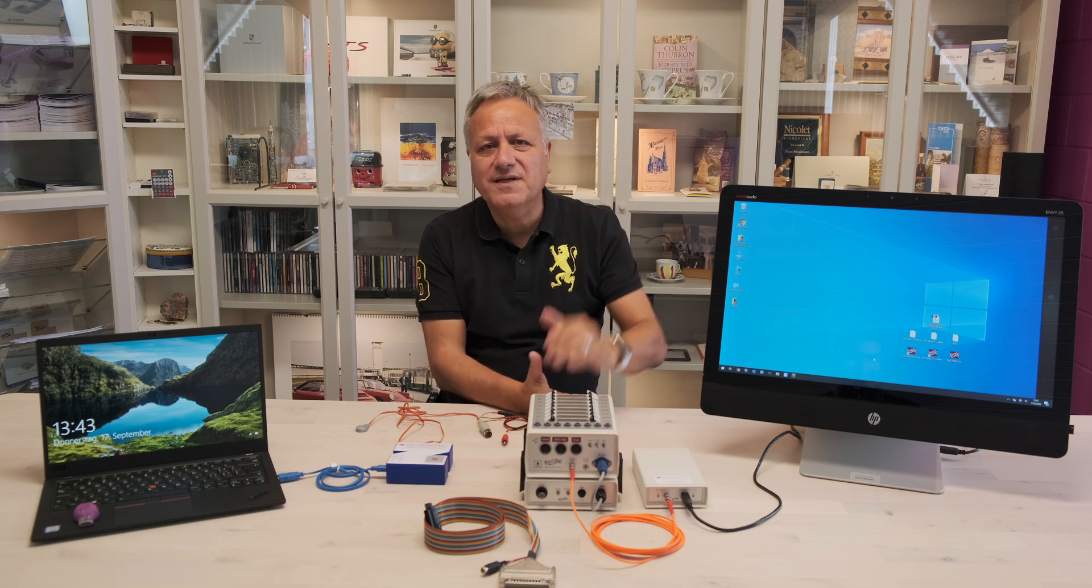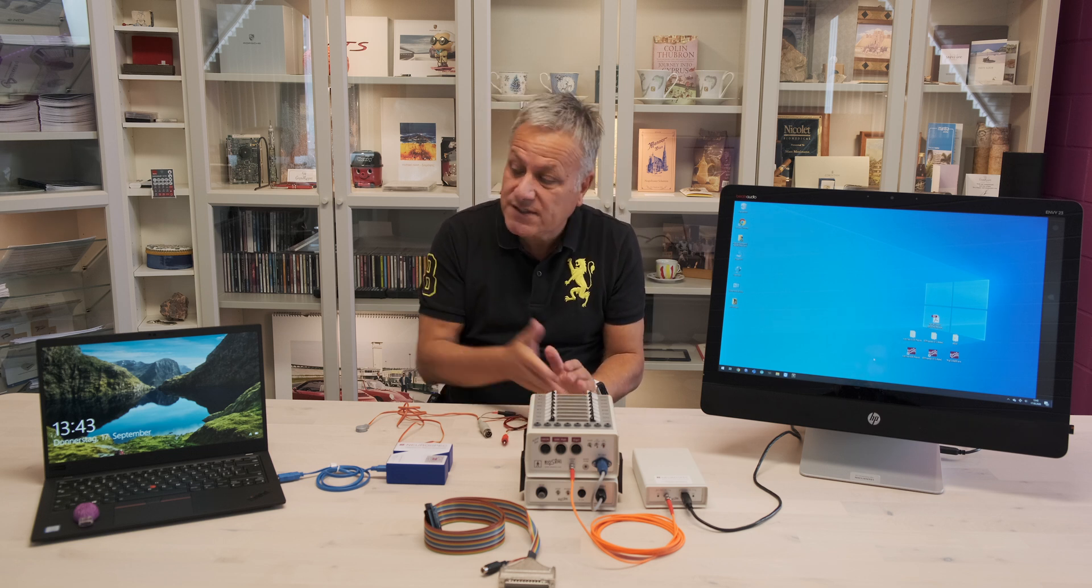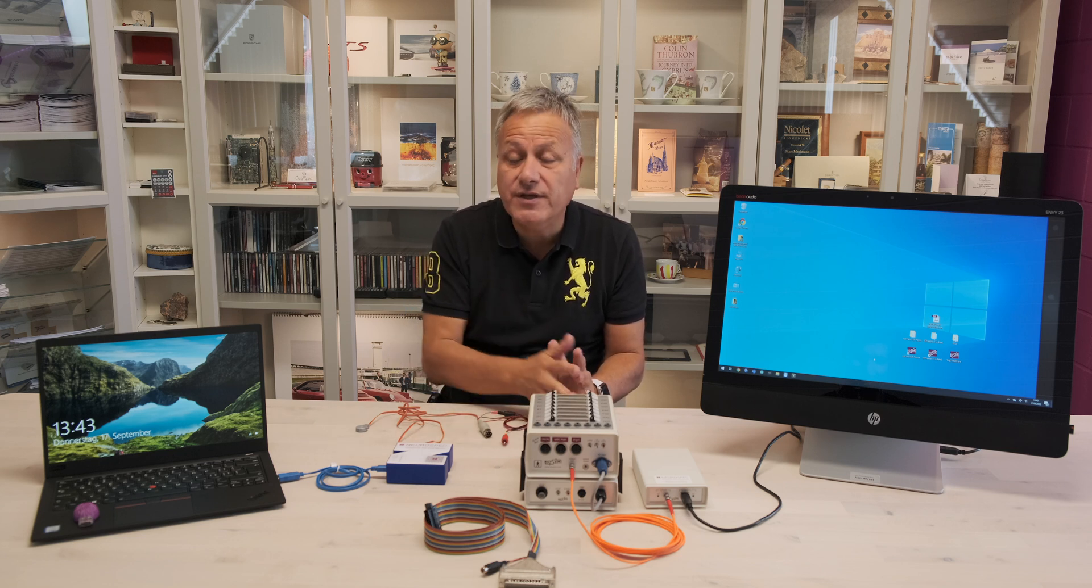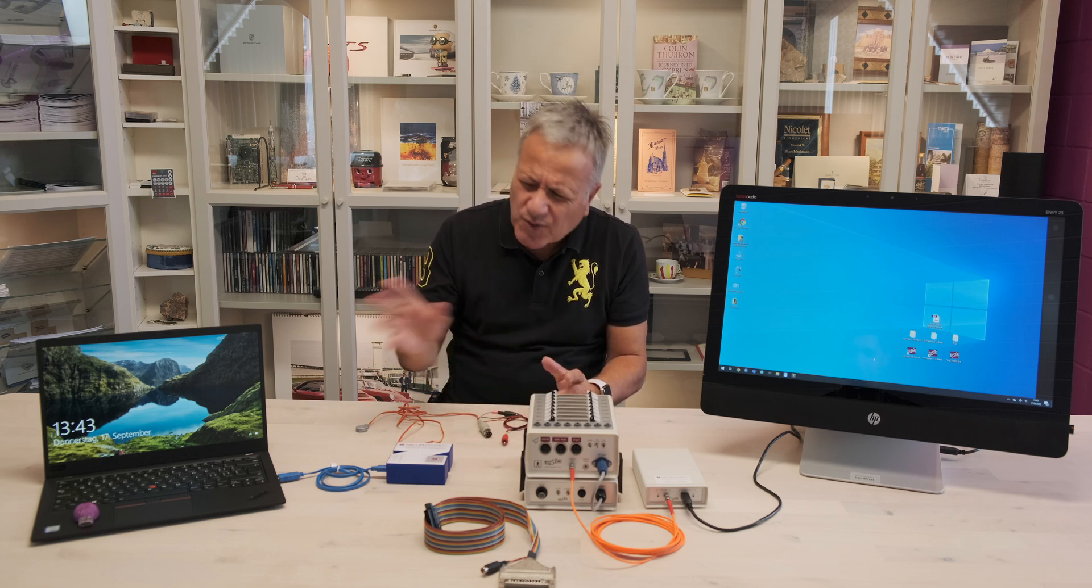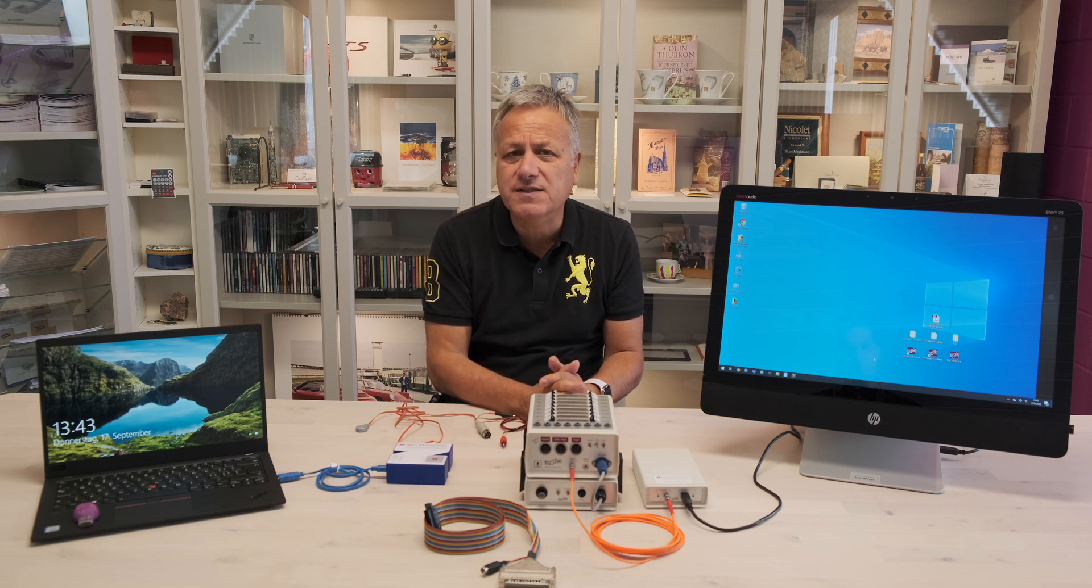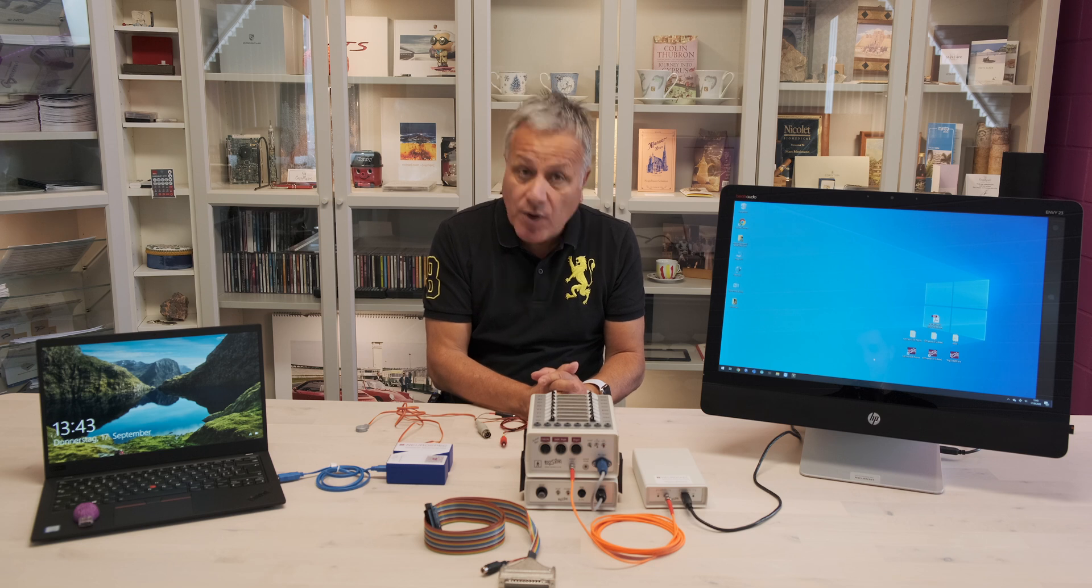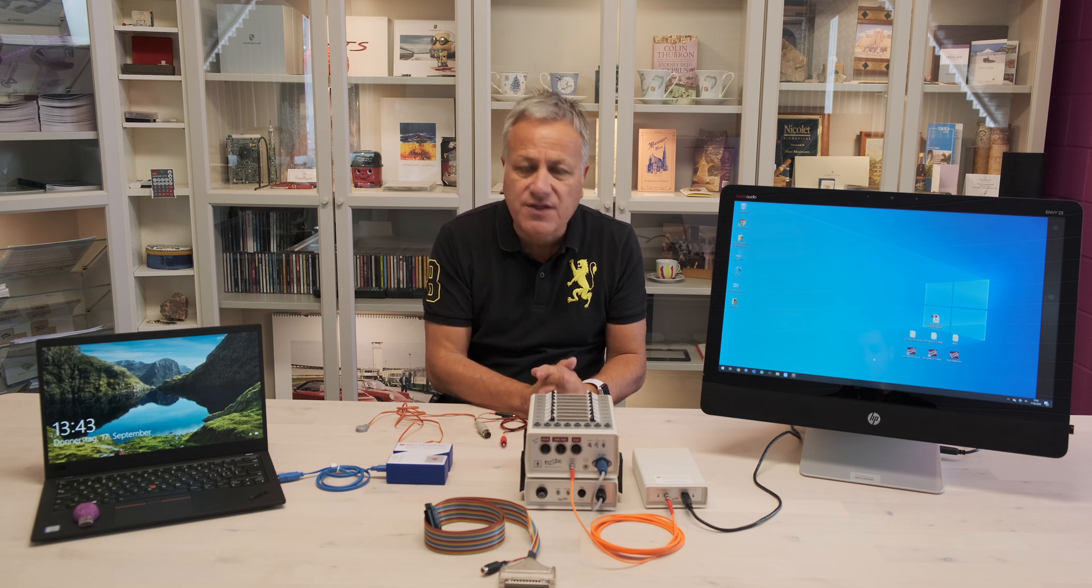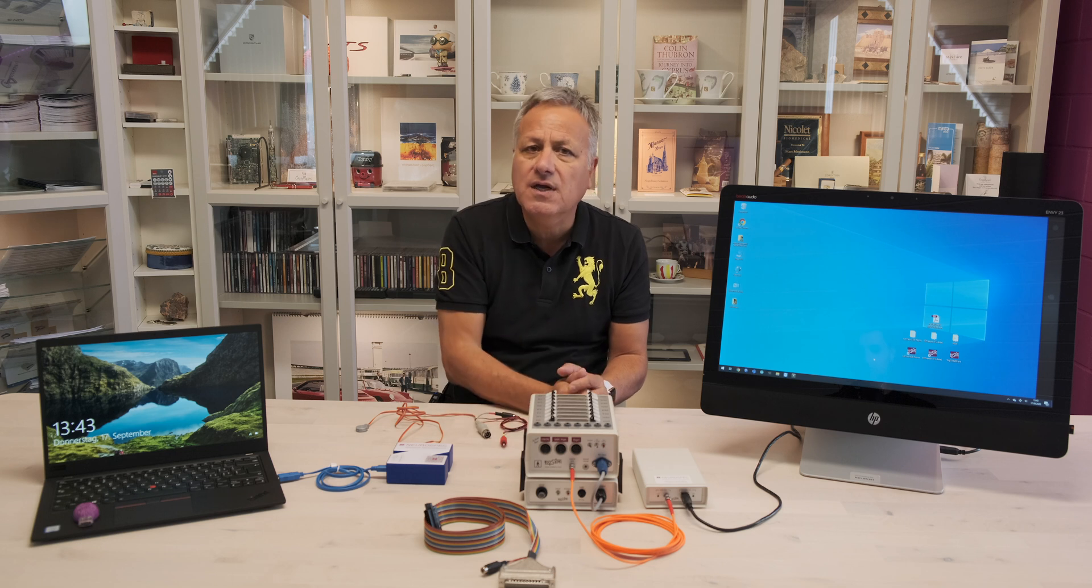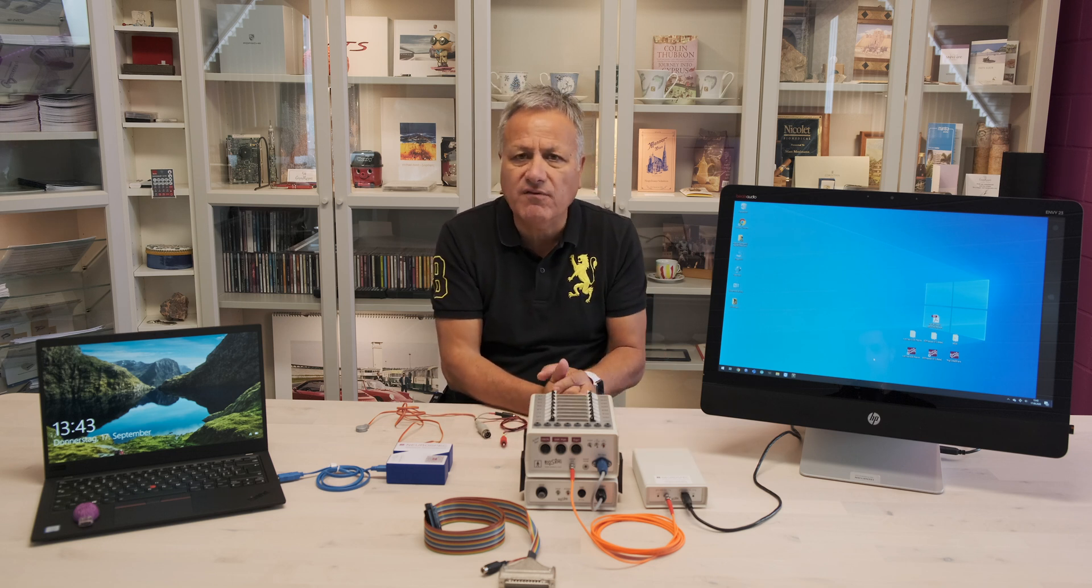Hi everyone! In this video we'll show you a contrast reversal setup through our trigger interface box. We'll show you possible delays of the operating system behind the stimulation program and hardware we are using, and we want to prove that there is no delay between the incoming data and the incoming trigger into the Active 2 of BioSemi.